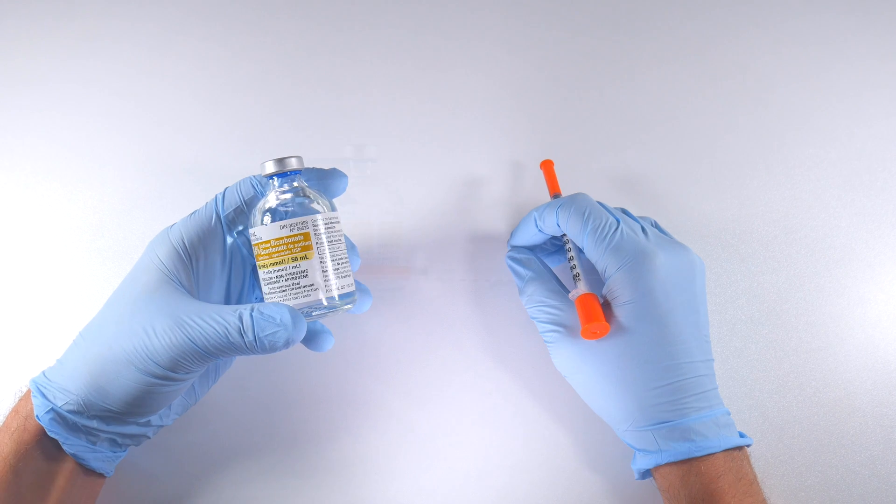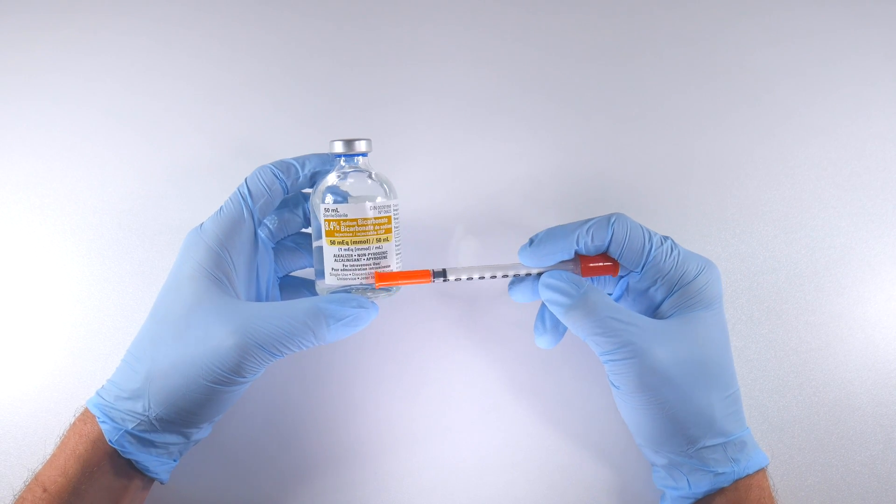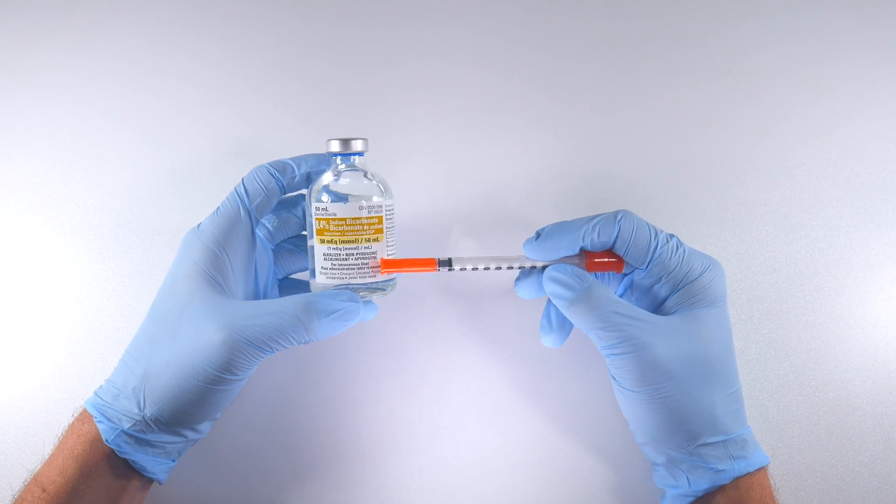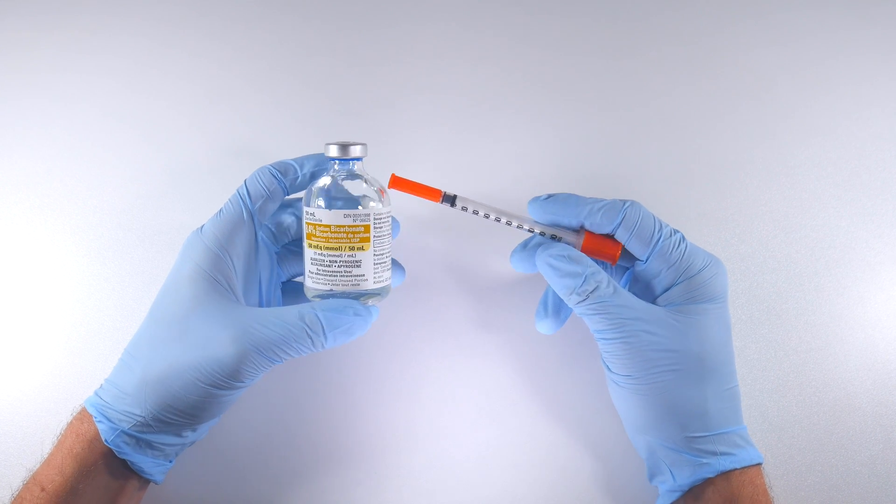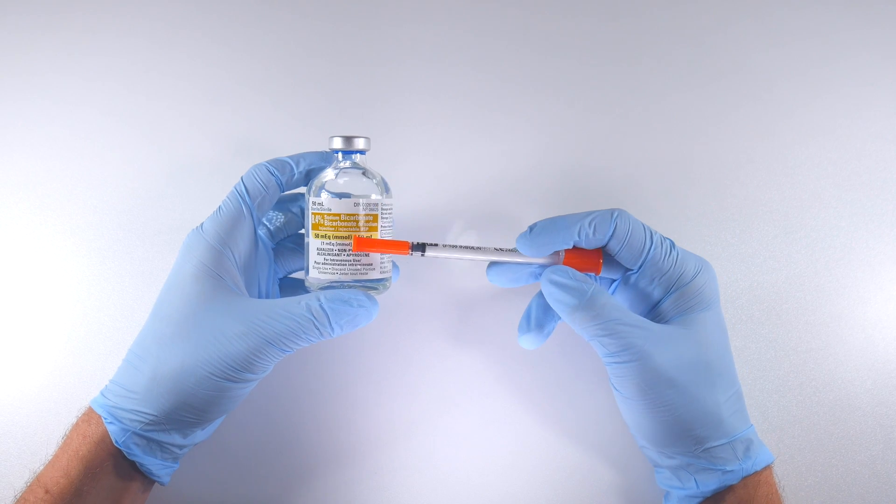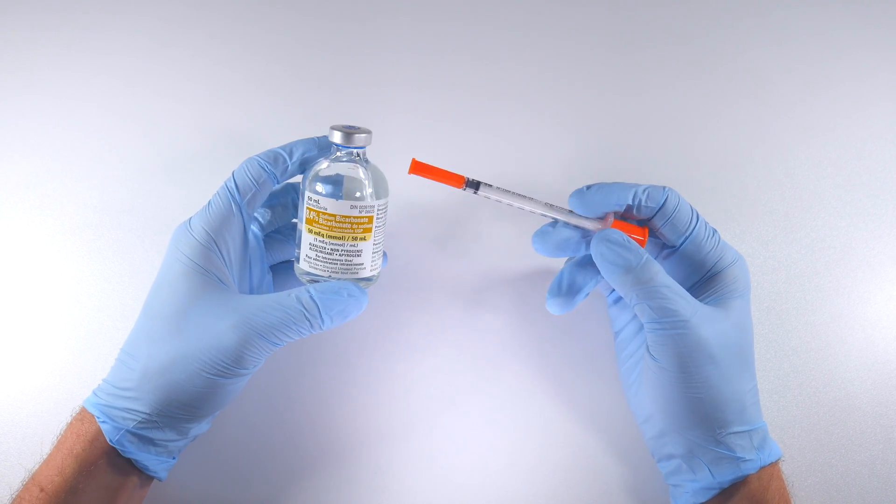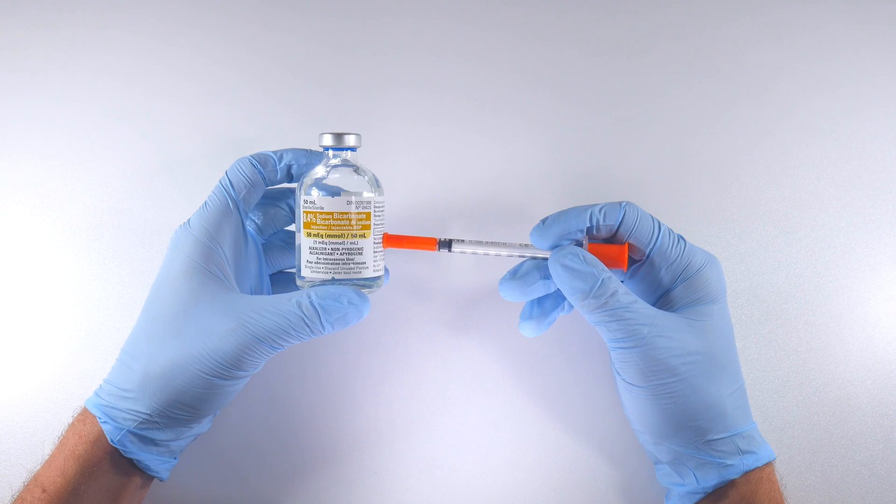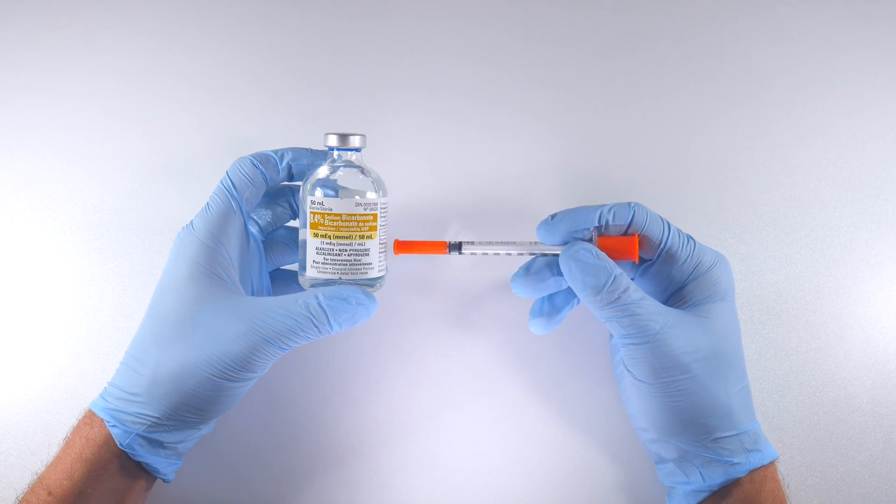Some of you might have picked up on this already - this does say it's a single dose vial, right? So discard the unused portions. These vials are quite costly, so if you were going to use this and discard it after taking 0.1ml out, you'd be paying way too much money.